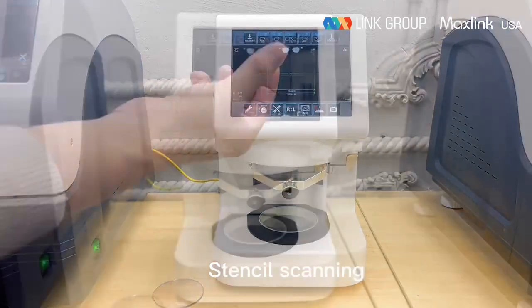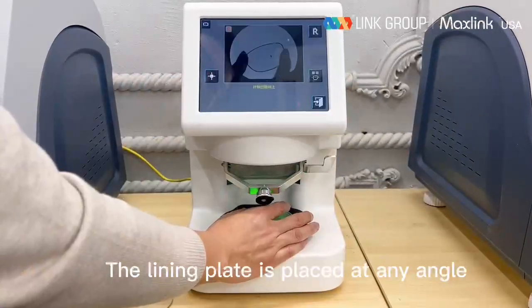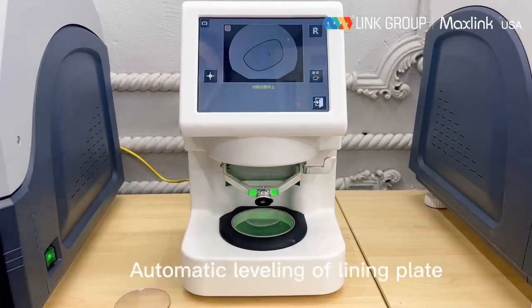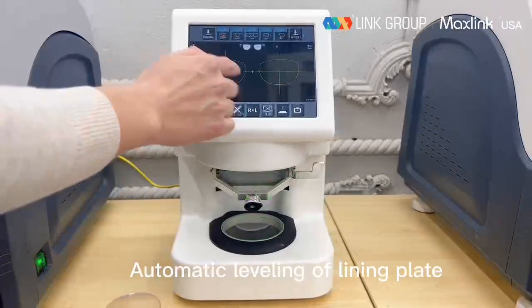The lining plate is placed at any angle. Automatic leveling of lining plate. Switchable left and right.